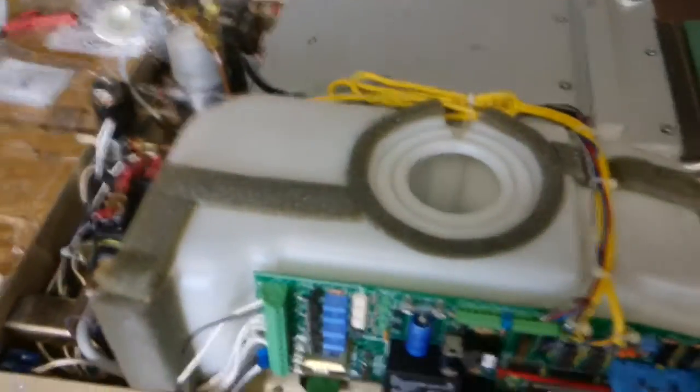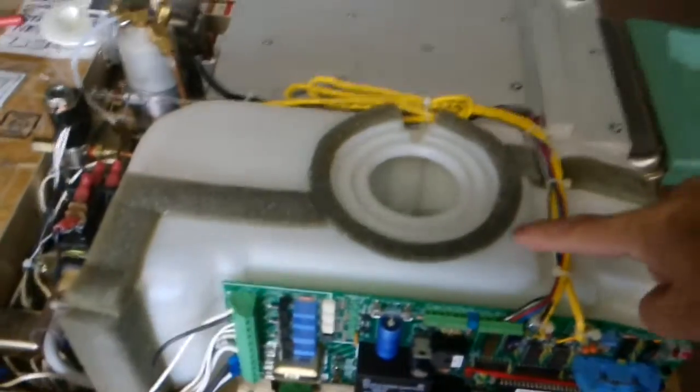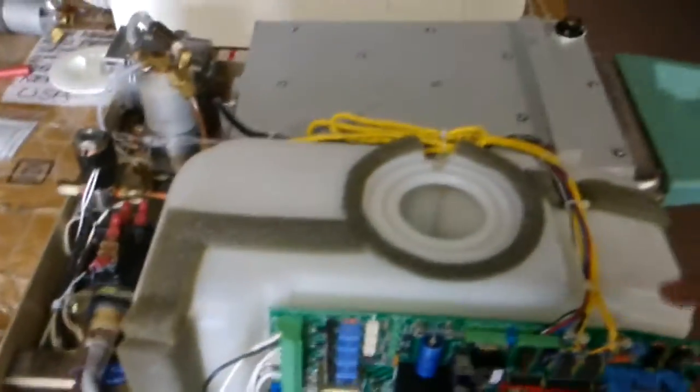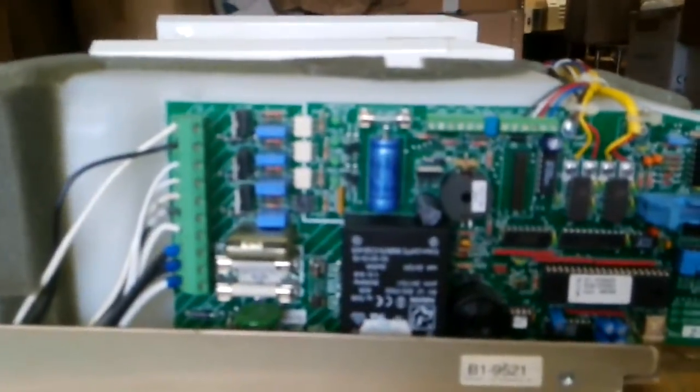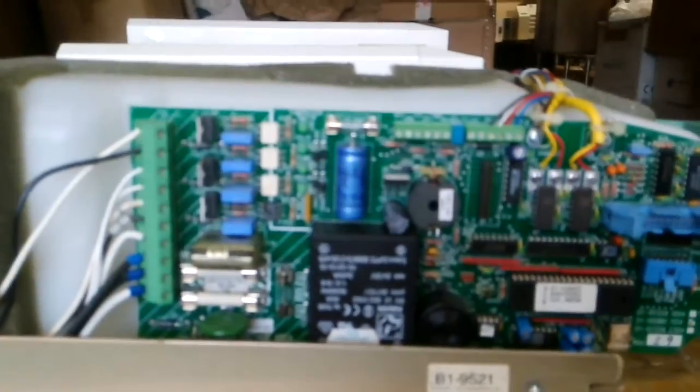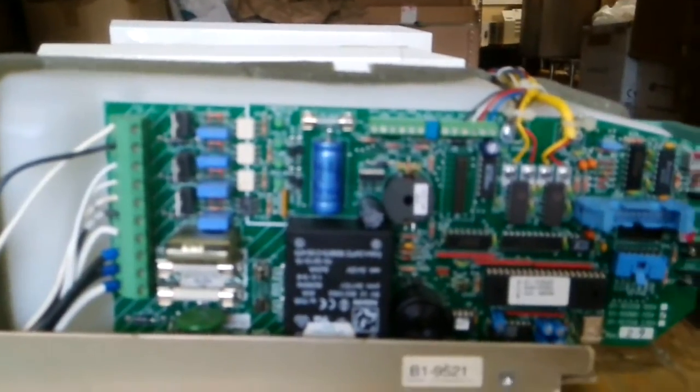You see this reservoir on the left side. There's only one circuit board. This board is smart - it works for both analog and digital models.